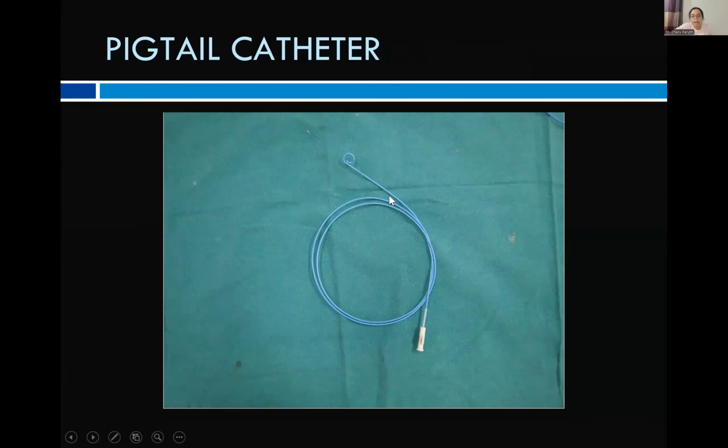So this catheter is a special type of catheter. So one is on the basis of their construct and their use. The catheters could be either diagnostic catheters, and also then on the basis of holes. They can either have a single hole at the end, or they can have multiple side holes. So all the catheters which we have seen till now are single end hole catheters. Pigtail catheter is a catheter which has multiple side holes as well as an end hole.